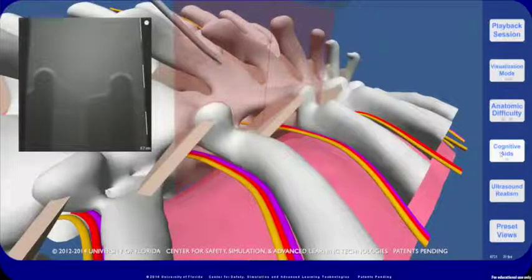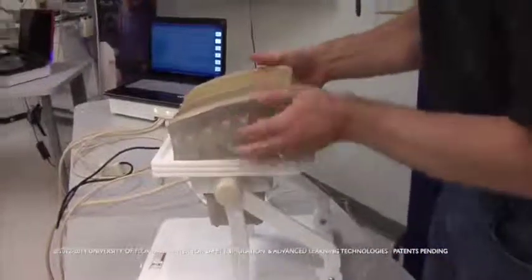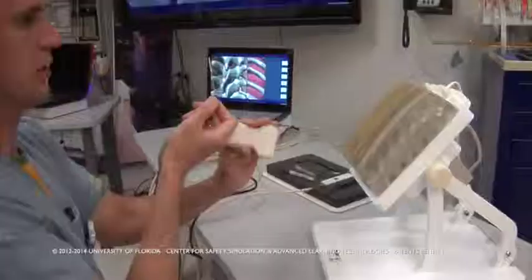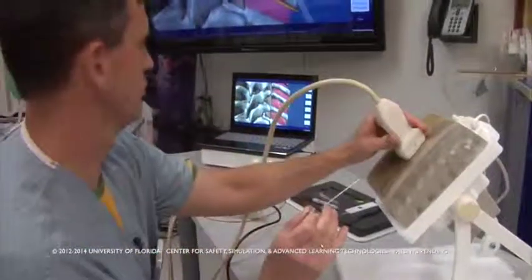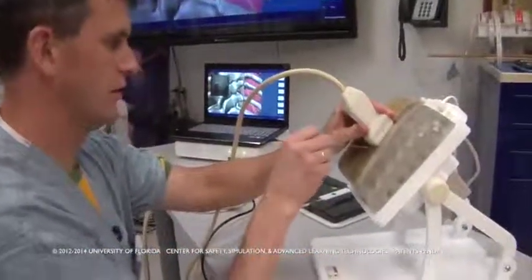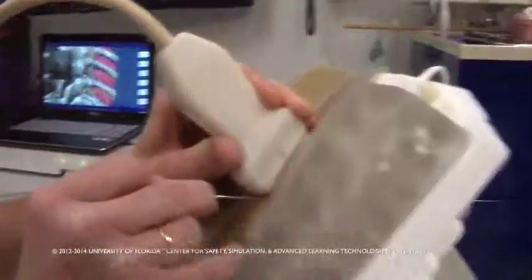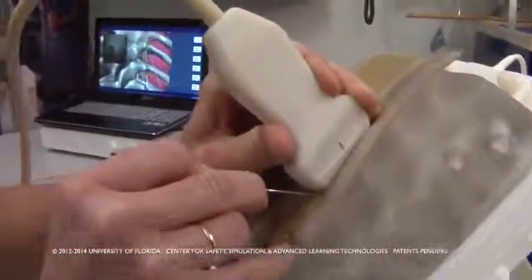The simulation contains a physical spine encased in gel, a virtual model, a tactile feedback system, a tracking system, and a scoring and replay system.